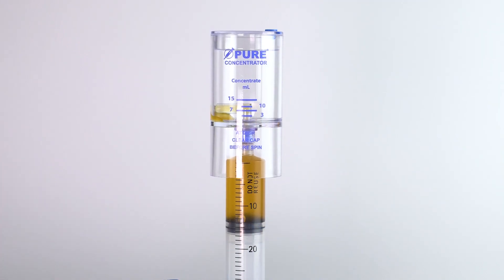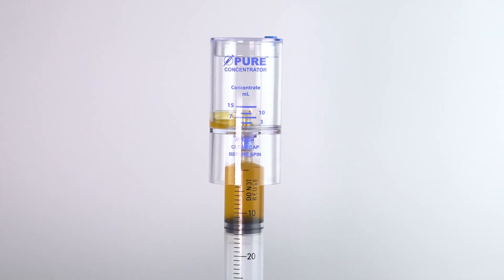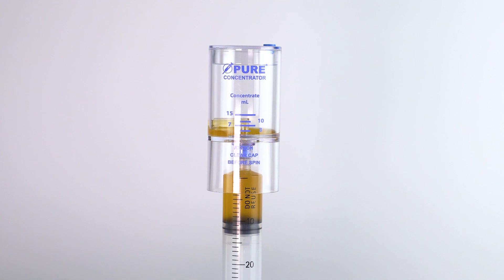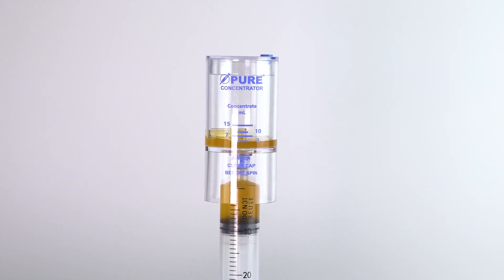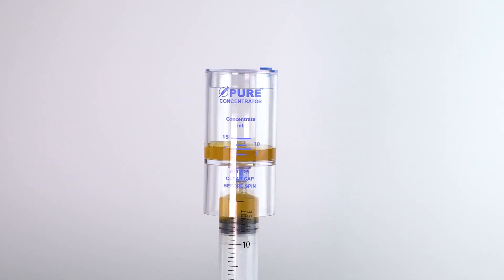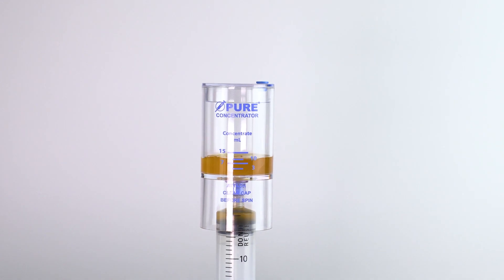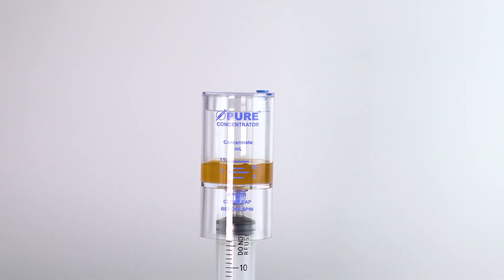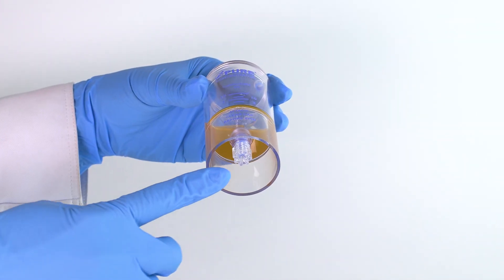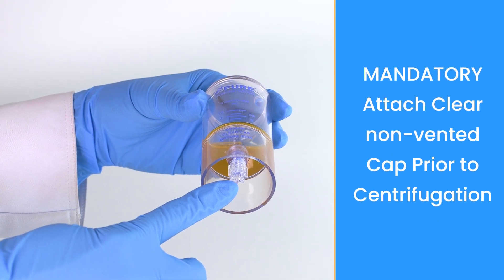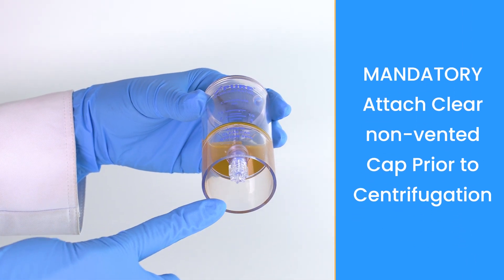While holding the concentrator device in an upright position, transfer the platelet plasma suspension through the bottom port. As a mandatory step, always attach the clear non-vented cap to the bottom port prior to centrifugation.